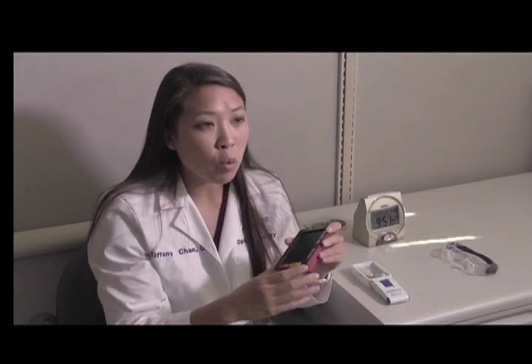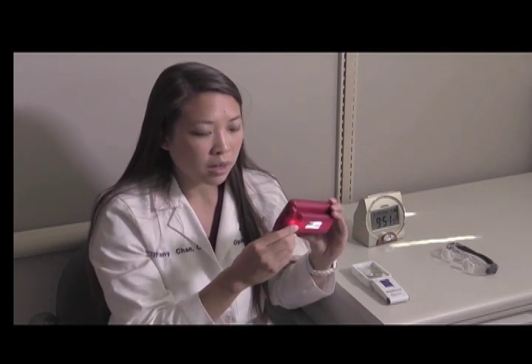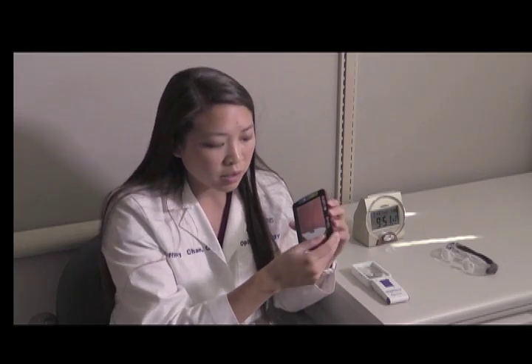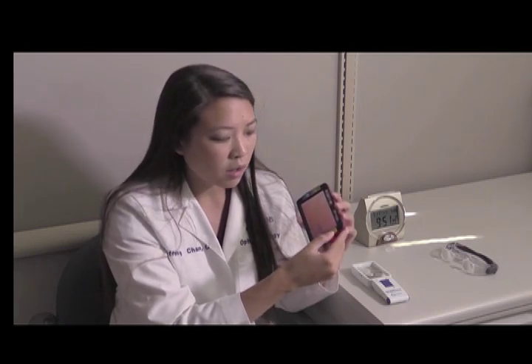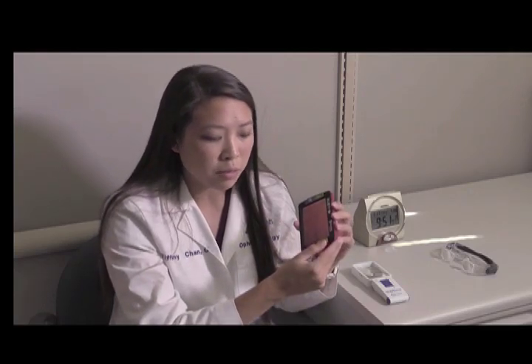If someone has even more reduced vision or lower vision, they may need more magnification. This is an example of an electronic magnifier. There's a camera on one side, and when you put that on top of the reading material, that can enhance the magnification. We have a variety of different settings to manipulate that print. By pressing the button, I can increase the magnification — for very small print we'd use a higher amount, or for large print or labels at the grocery store, we would use less magnification.